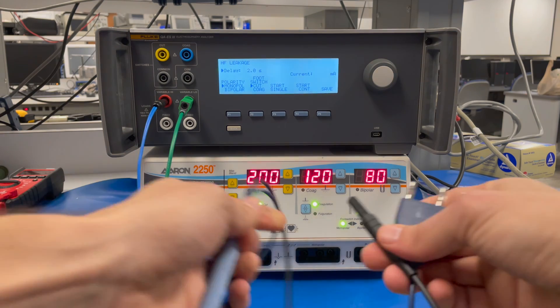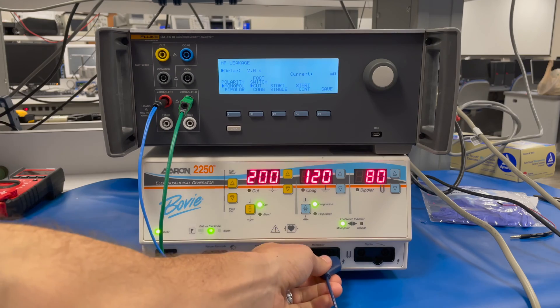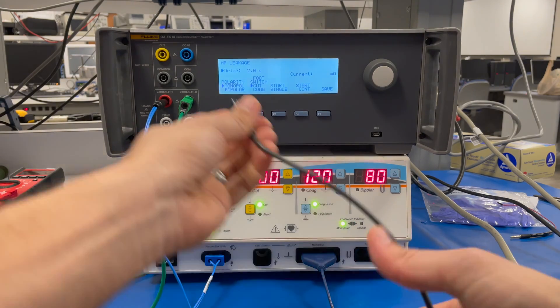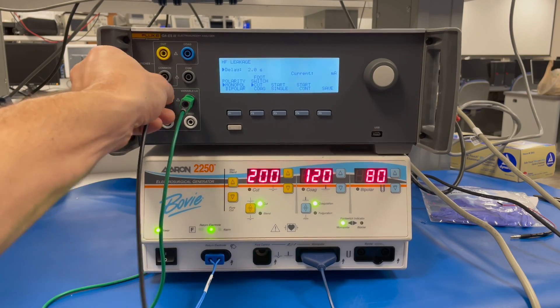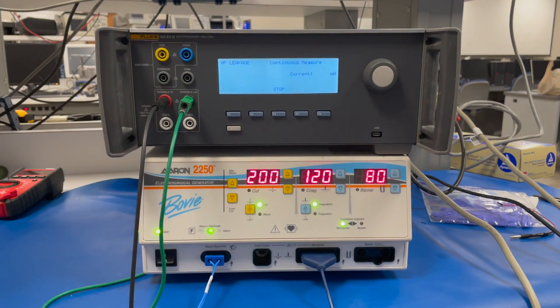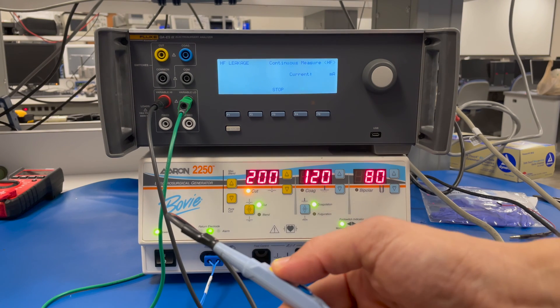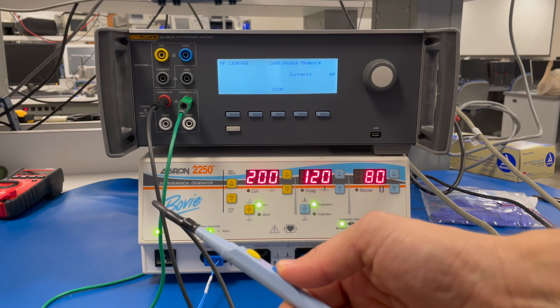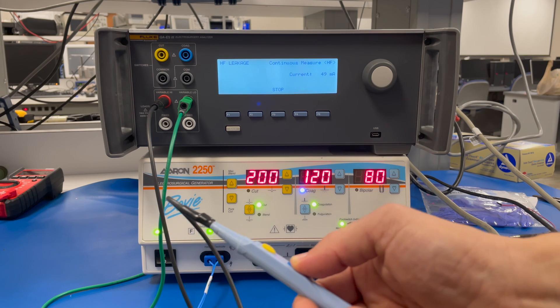Now that we've tested the return electrode, we can test monopolar mode by using a pencil that I can connect to the variable high. Once I make sure that my settings are correct, I can go to start continuous, hit the cut to get a measurement, and then hit my coag to get a measurement of the coag.